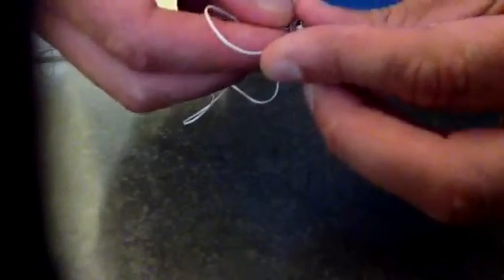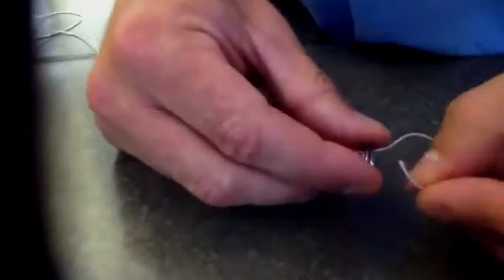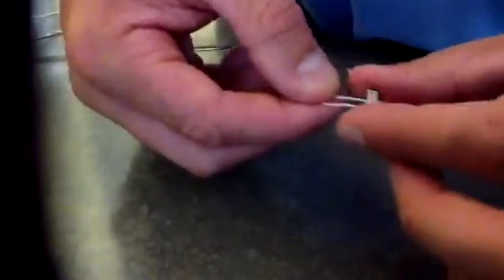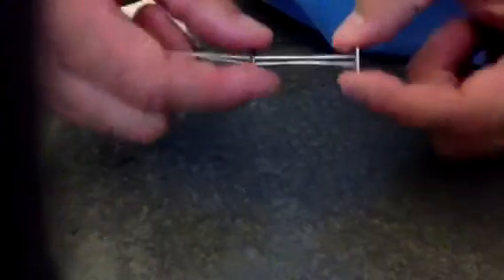With a fresh stitch it passes really easily through both sides. I have it again — pulling it tight — and then I'm going to line these up one last time, take that fresh end and stick it back through those inner islets, pull everything nice and tight, then pull on this limb to get it even with the other end. What you essentially have is two endo buttons doubled over with the number five ultra braid.